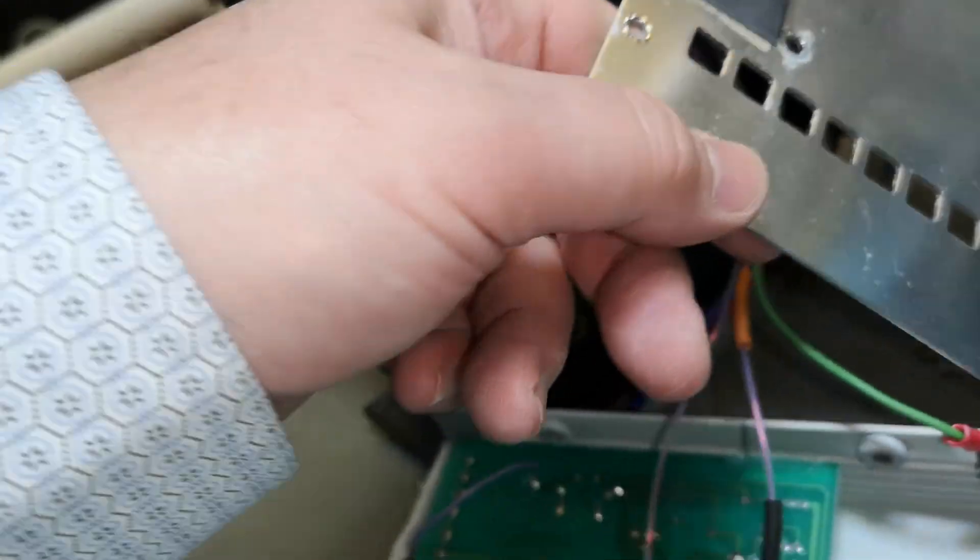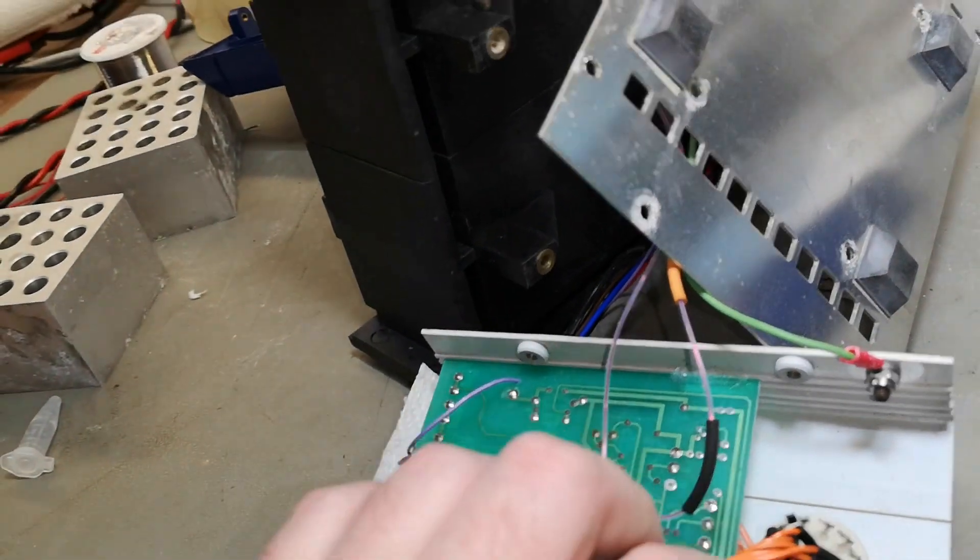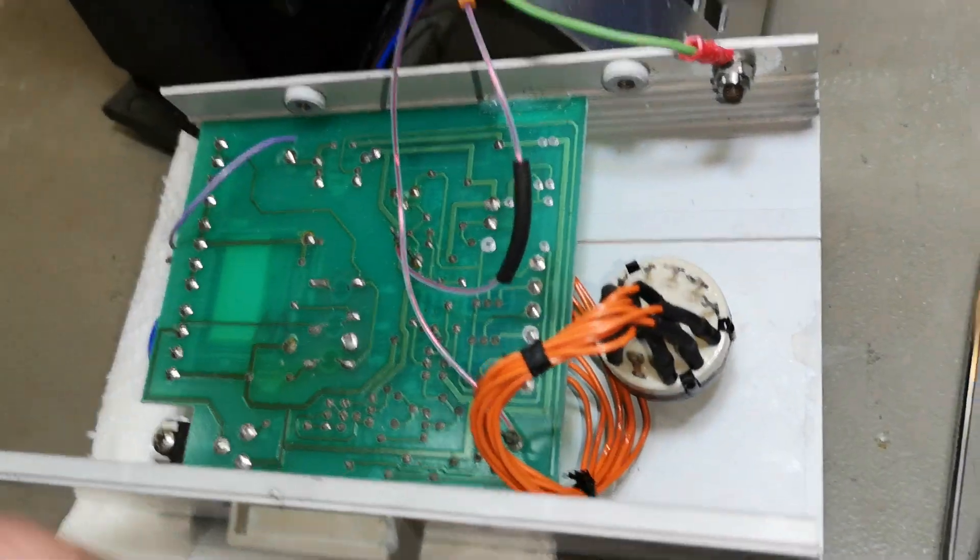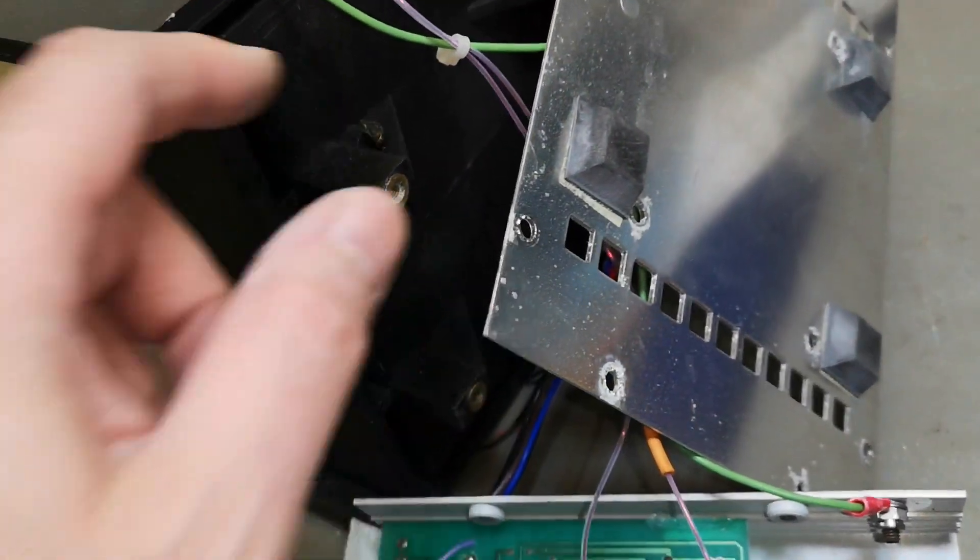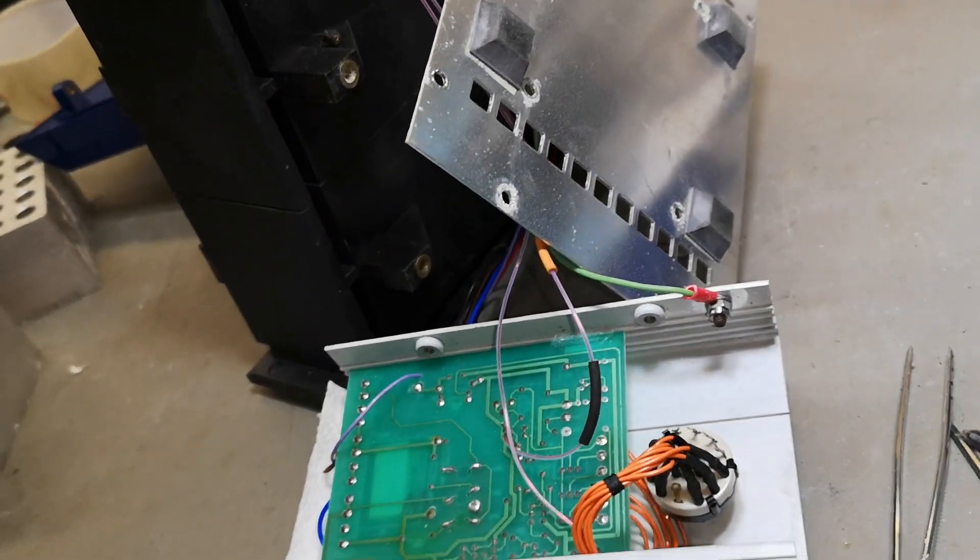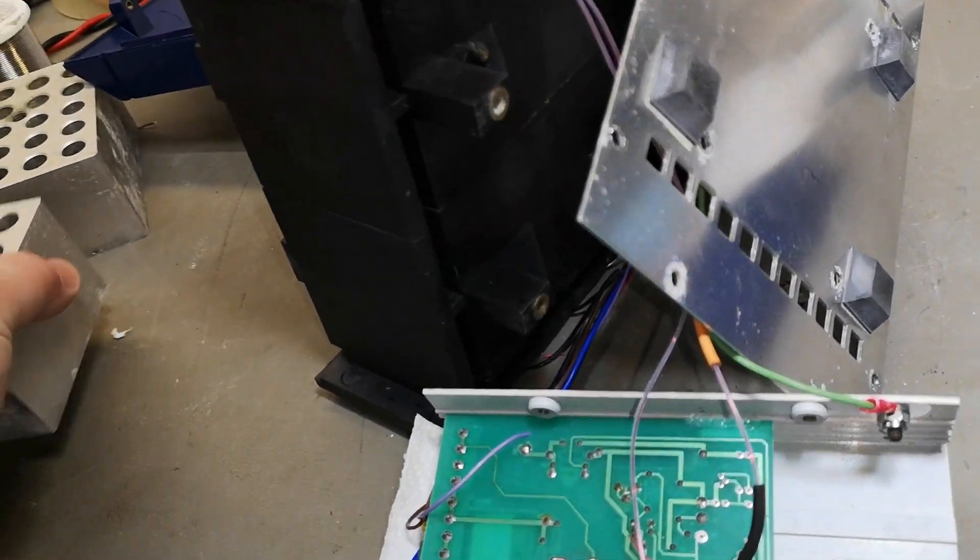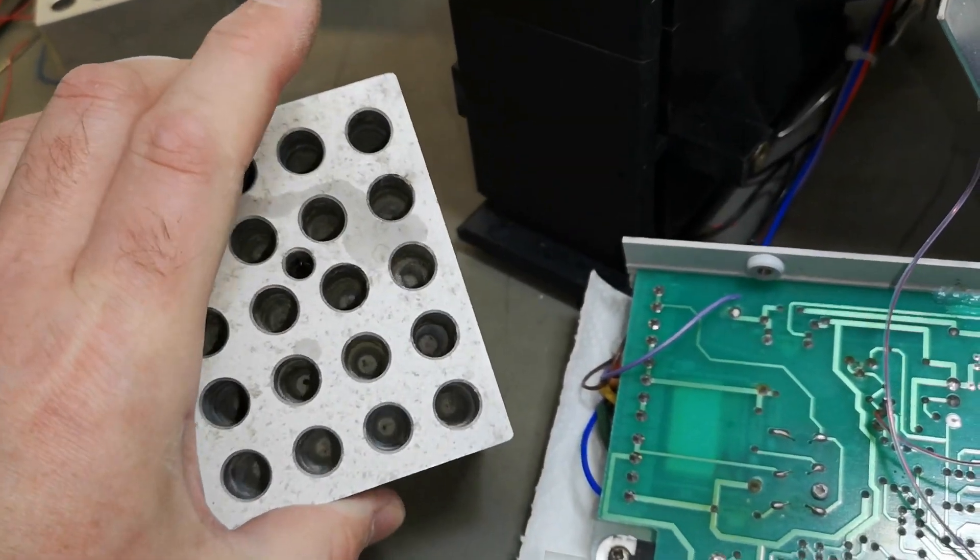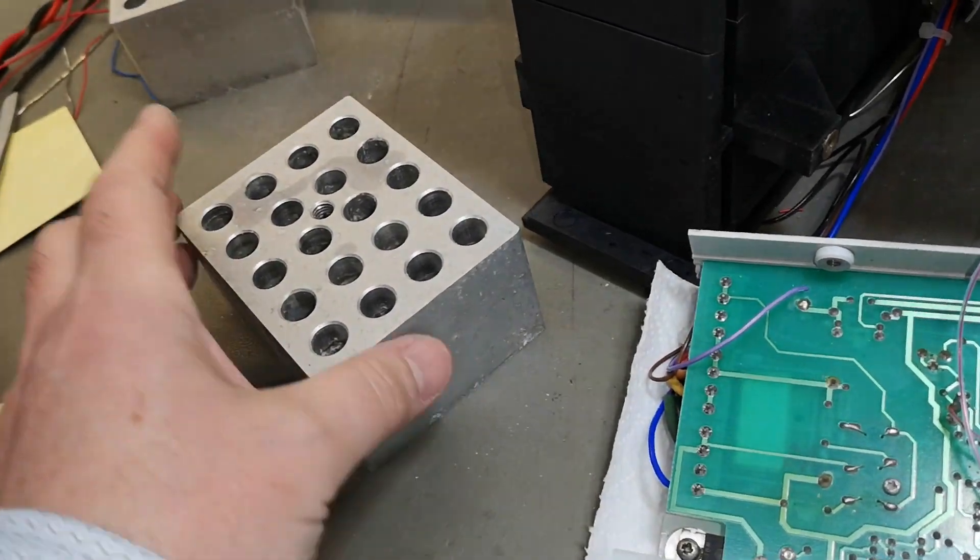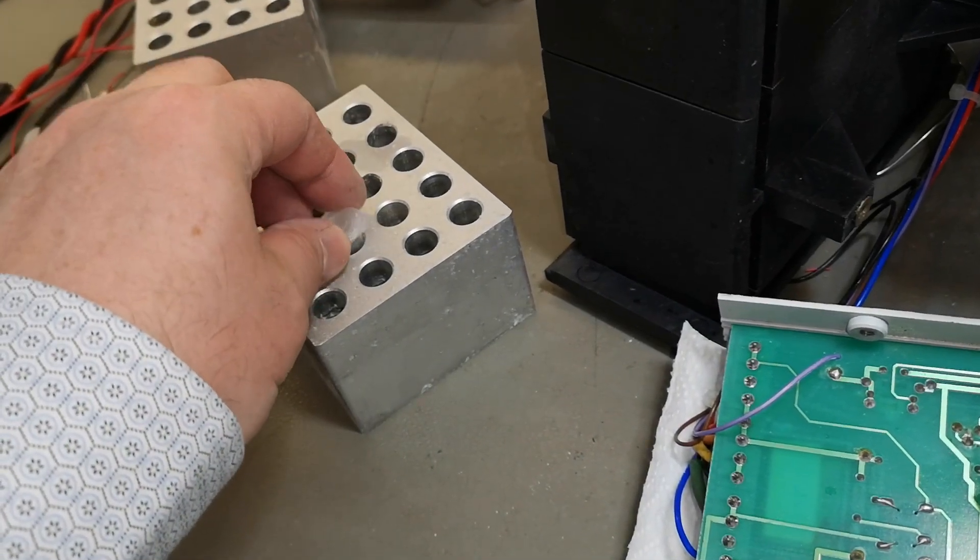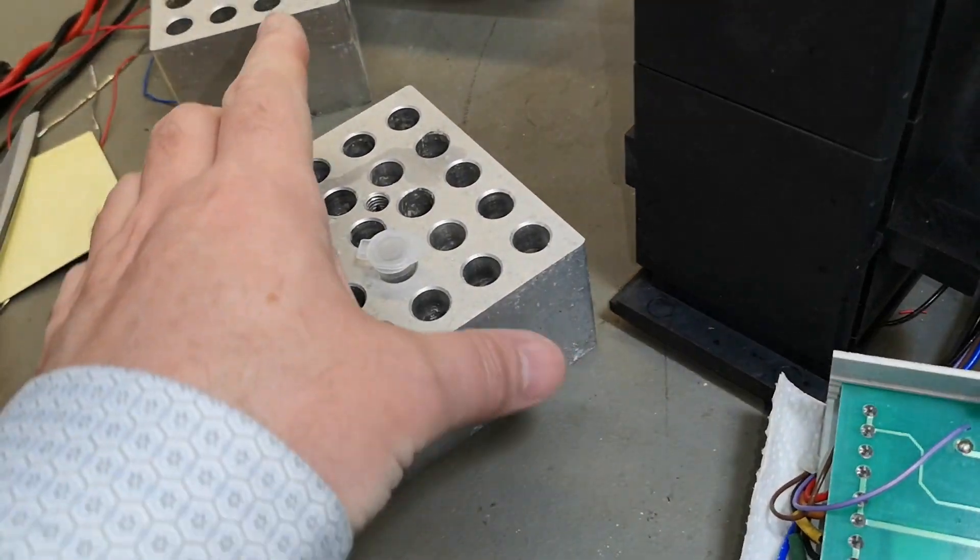And there you have it, your nice product. All I will have to do now is clean all this up, clean up all this old corrosion. What is that? A dead bug! That was disgusting, I got a big shock. But all I have to do is clean everything up and make it nice and shiny again. I can probably make this also look nice and shiny, and then I can perform all sorts of med lab experiments.